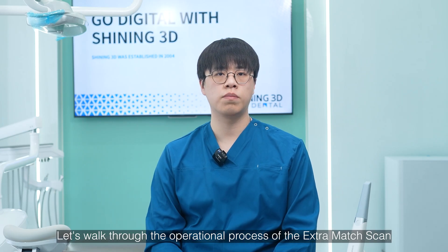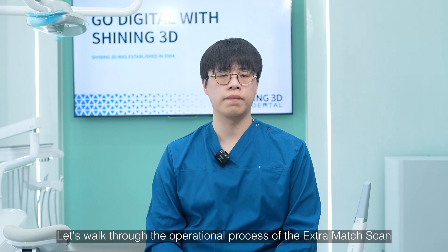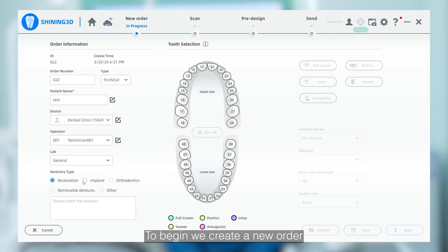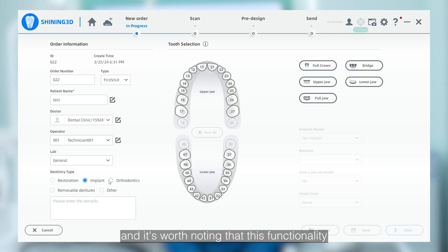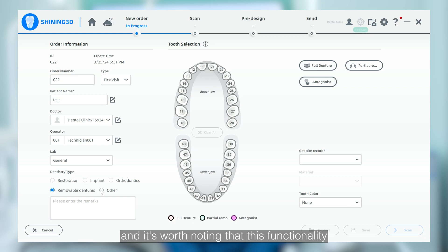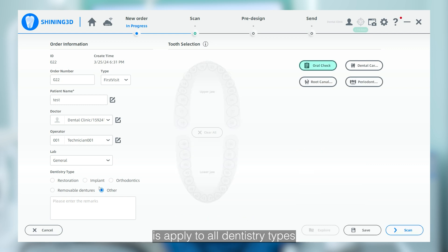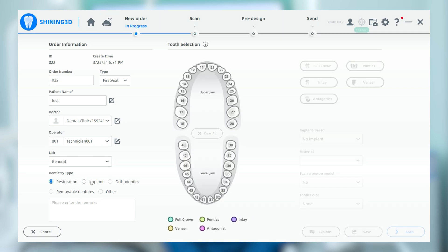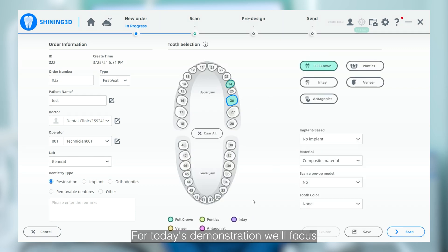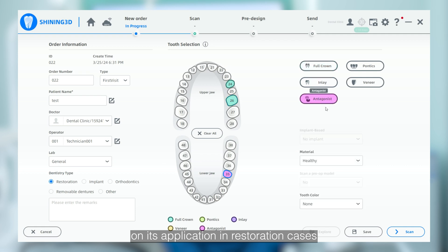Let's walk through the operational process of extra match scan. To begin, we create a new order, and it is worth noting that this functionality is applied to all dentistry types. For today's demonstration, we will focus on its application in the restoration case.